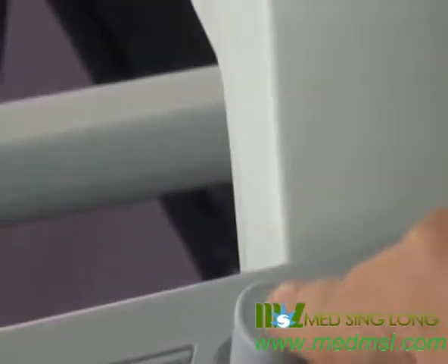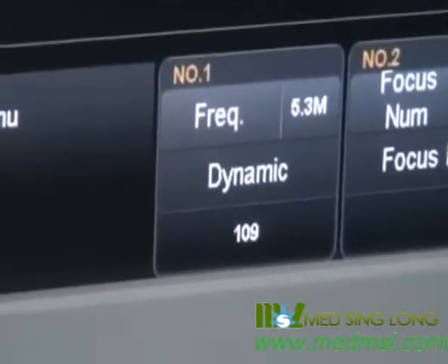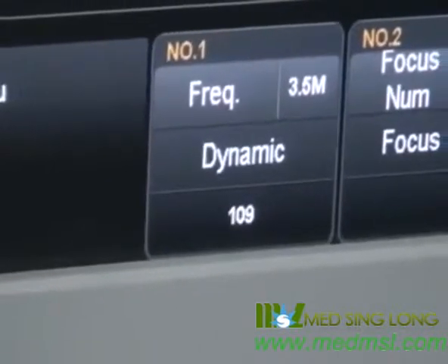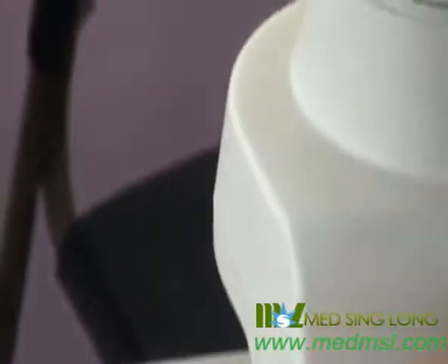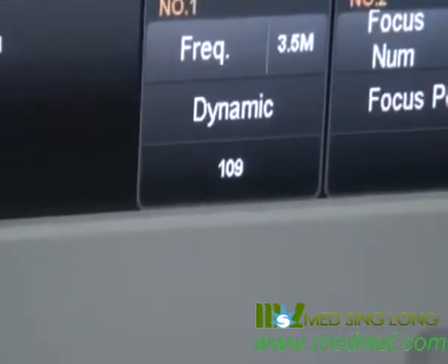For frequency, press the knob to adjust. If the patient is fat, we should choose a lower frequency to get better penetration. If the patient is thin, we should choose a higher frequency to get better resolution. The higher the frequency, the better the resolution, but the lower the penetration.